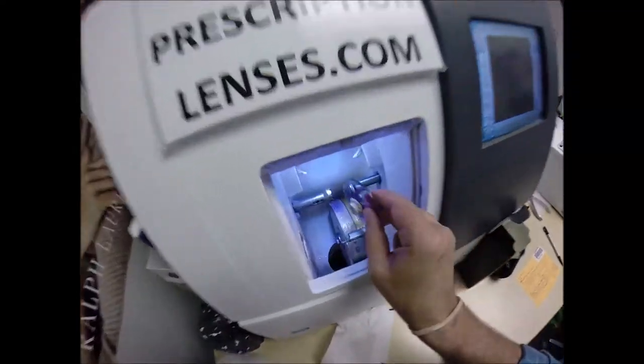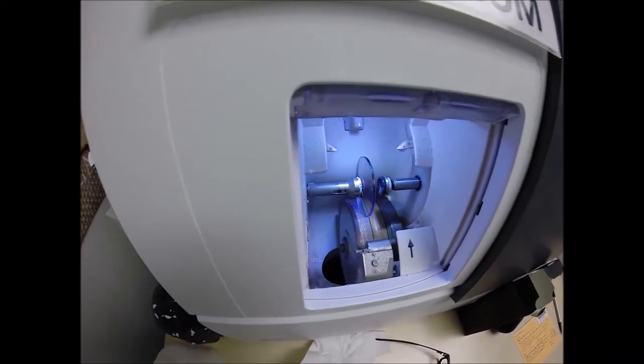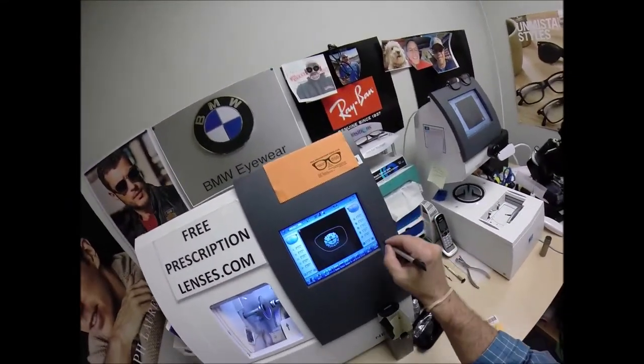So we're going to take the left lens. Put it into the Chuck, the Charles, the Chucky Baby, the Chuck-O-Rama. Or tonight, I'm calling it the Carey. Flip that over to L. Hit Start.